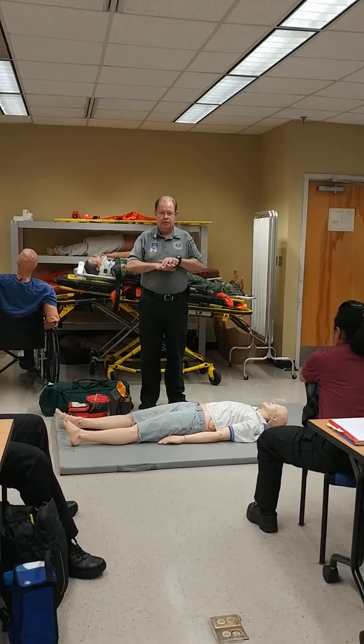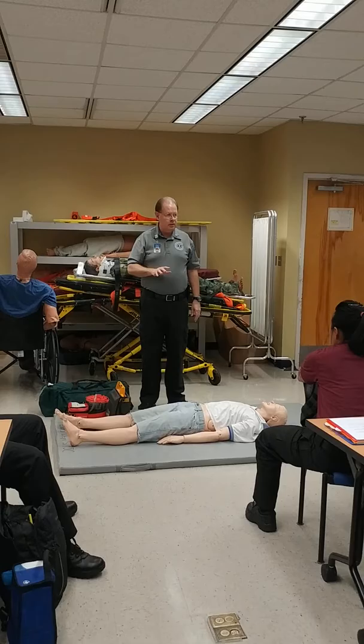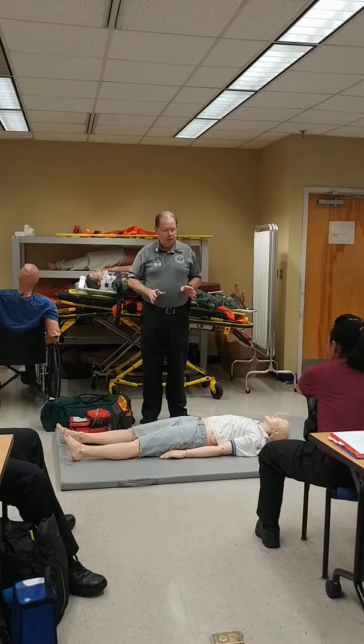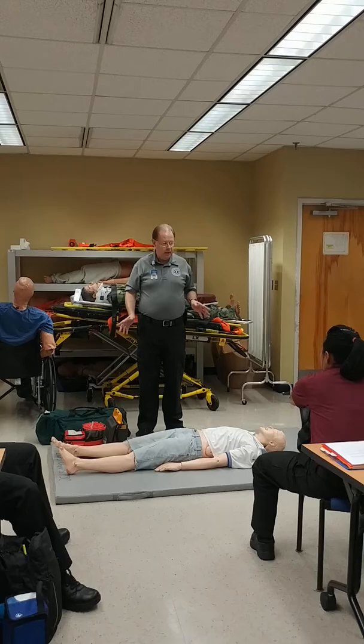If the machine says shock advised, the person doing compressions resumes compressions, because the longest we can be off the chest is ten seconds. It's going to take several seconds for the machine to charge up, so we continue compressions until it's charged.